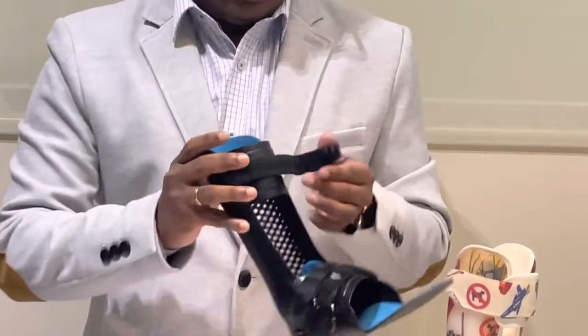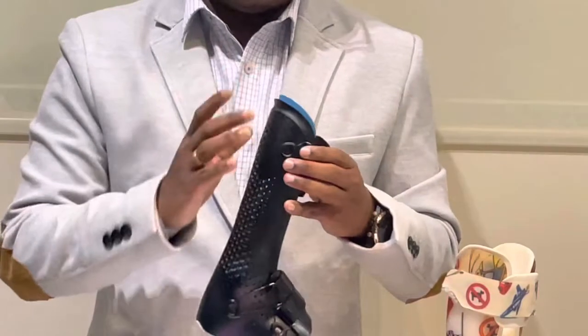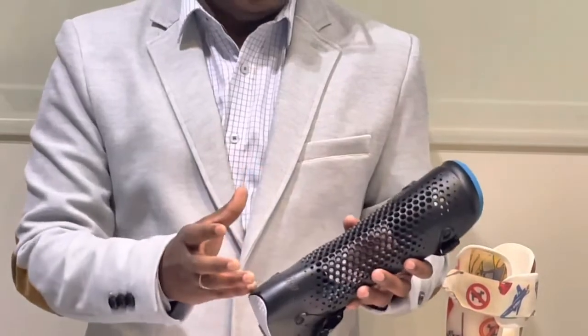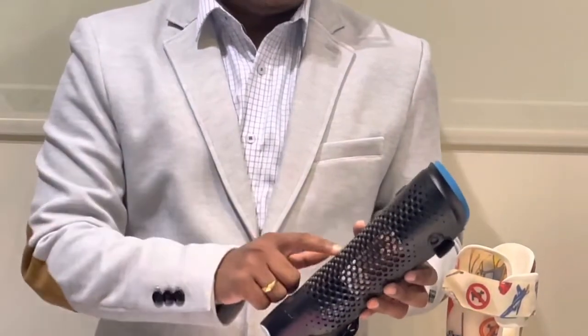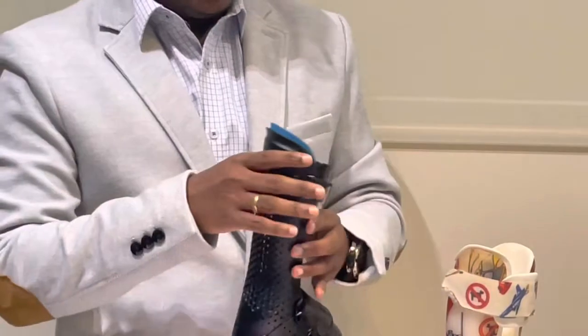Because of the flexible padding, when the child uses it for a longer time there is no direct contact or pressure on the skin, so the child feels more comfortable. Another important thing is that children using an AFO for the first time often feel it looks too bulky or the white color looks different and they don't adopt it. This 3D printed AFO comes in different colors — black, pink, blue — so the child can adopt it more easily.